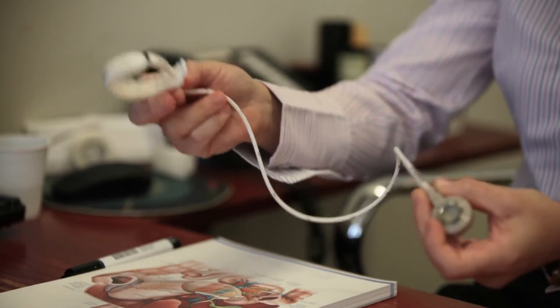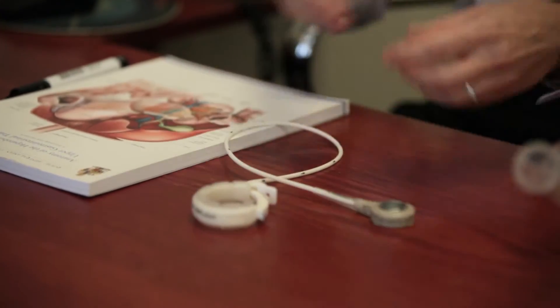Welcome back, Candice Silverman. You've seen my video on an overview about obesity and the role of weight loss surgery. I'm going to talk about the laparoscopic adjustable gastric band now. This is actually what the device is. It's been a very commonly performed operation in Australia for the last 15-20 years, and there are a lot of patients in Australia with a gastric band, the majority of whom have had really good weight loss results.